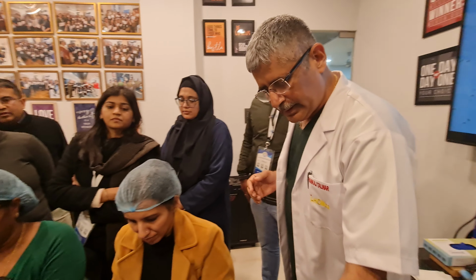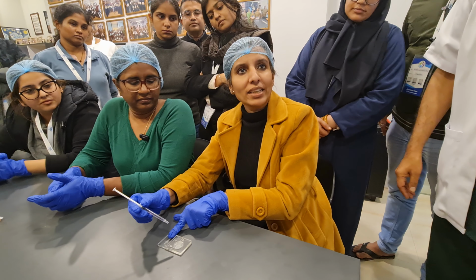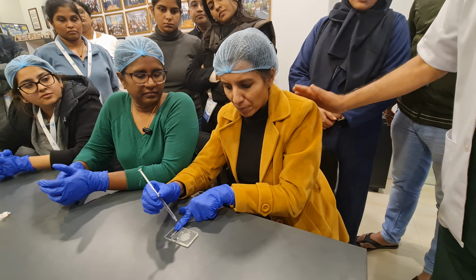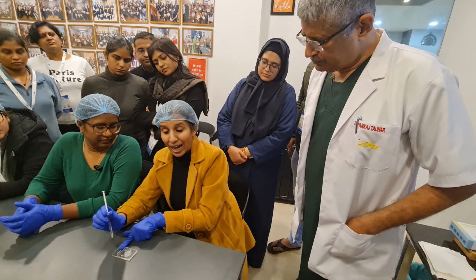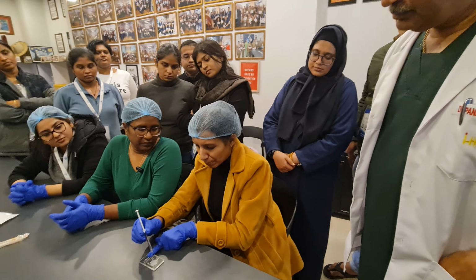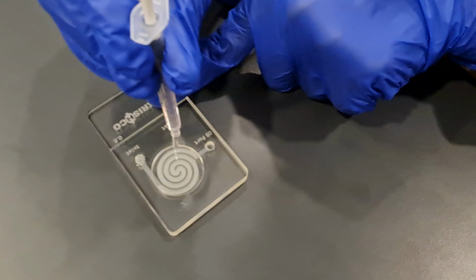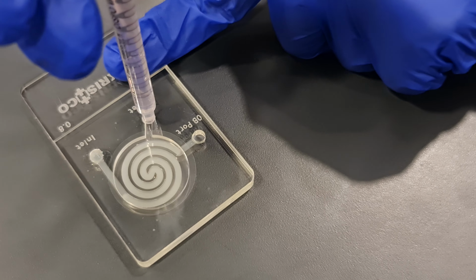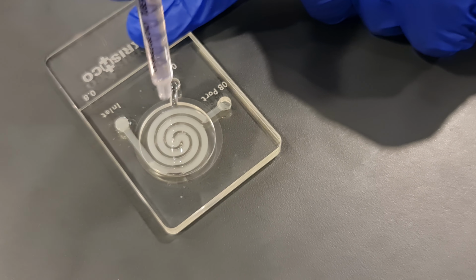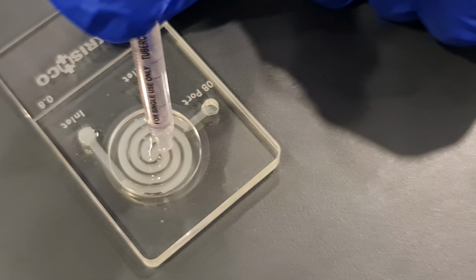So now we'll go to the third important step. Dr. Deepshikha, I'm from 136 batch, the C2 course under Dr. Talwar sir. I'm on the third part. I'll be pushing the media on the outlet port. We will be putting 2 drops on the outlet and then we'll spread. So 2 drops you put only for lubrication of the outlet. Otherwise the sperm will get dry there. Only 2 drops, gentle push. You wet it and then you spread on the top of the membrane.